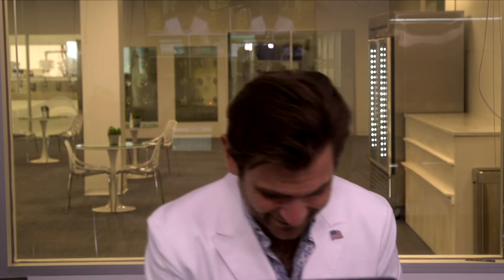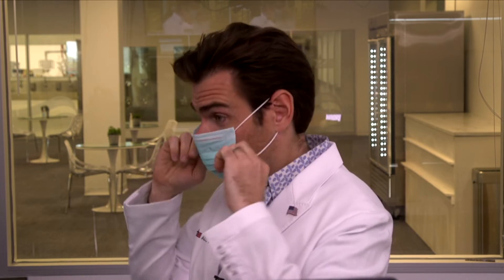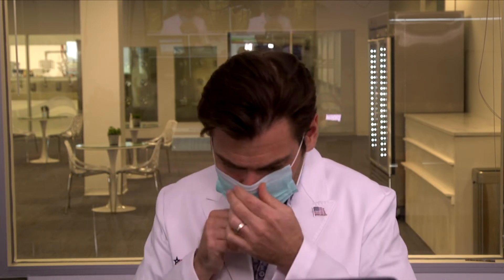This is borderline evil, what these people are doing. And shocker — the ear loops are not ideal either. I don't like to be negative on a company, but if you're watching my videos you might wonder. I don't like to dunk too hard on people — I like to give people the benefit of the doubt. But if you are putting three layers of Spunbond and putting 95% on the box, making people think it's going to protect them, you're a bad person. You're lying to people. I'll smell it — we'll see what happens, let's just go through the motions. The ear loops are really small too, by the way. I'm going to call this smell 'the printed-out script for the movie Liar Liar' — get it? It smells like paper and they're lying to you. So if I explain the jokes, are they funnier or worse? I'm not sure.